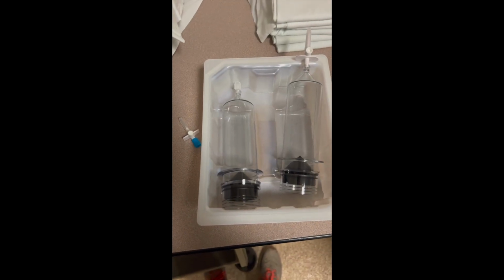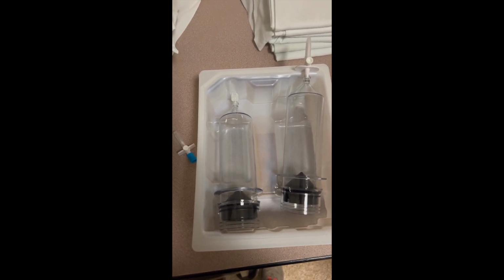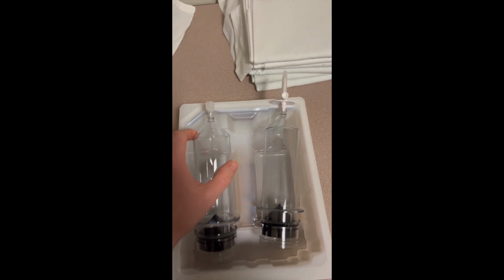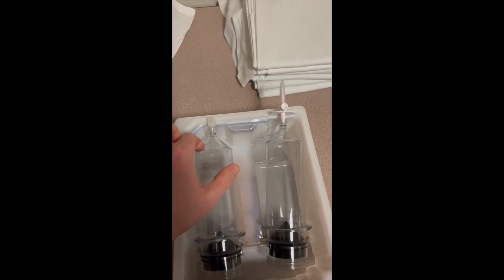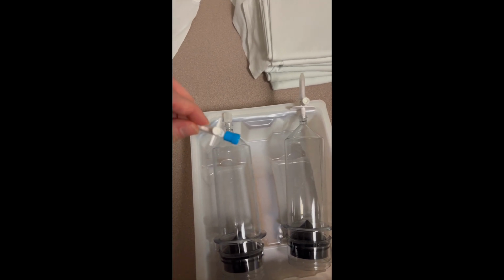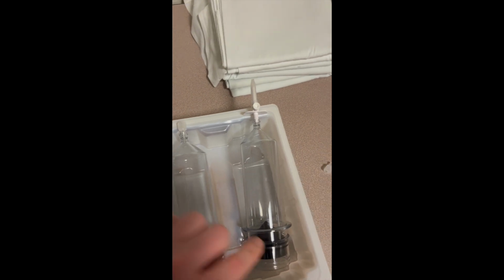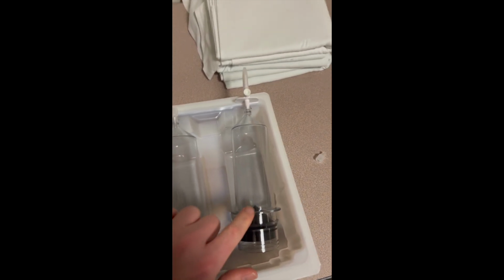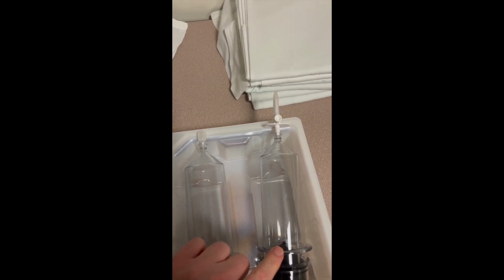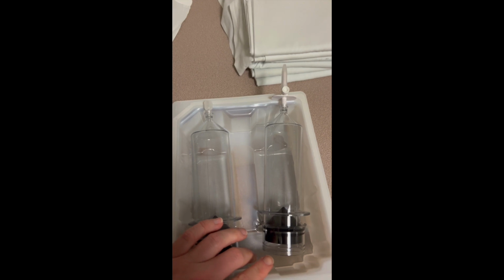So these are the containers that we use for our saline and contrast. What you can go ahead and do is once you pop it onto the container, you'll take this plastic part off. You'll take this blue cap off, and then it just sticks on there. It'll turn and it'll look like this one here. Once you're ready to put your contrast and saline in, you'll pop off this little cap, and then you'll be able to stick them on there.